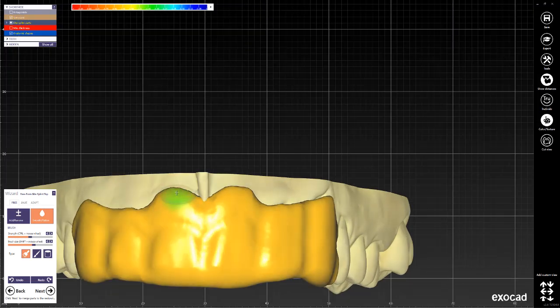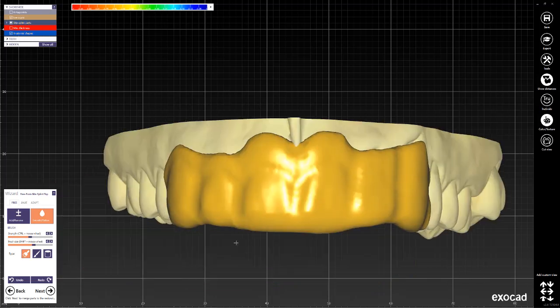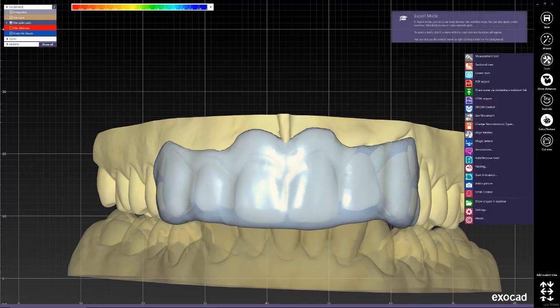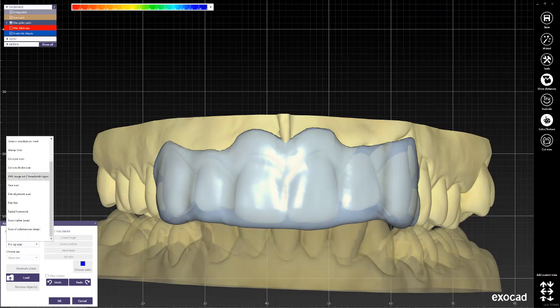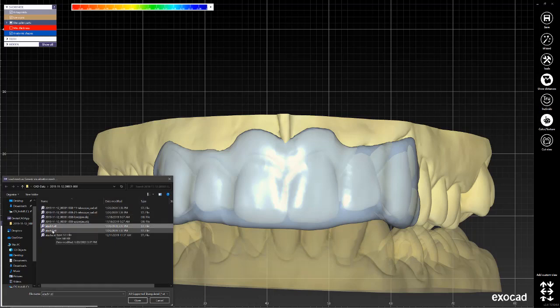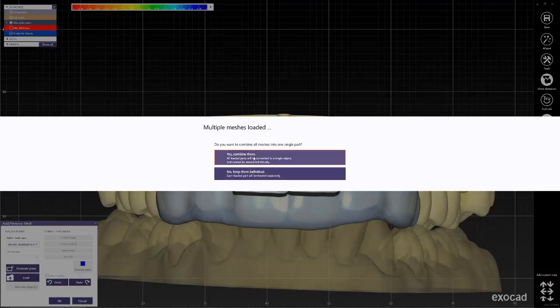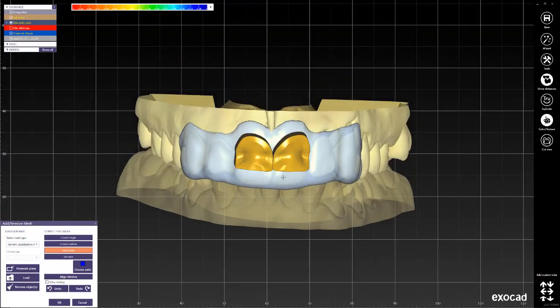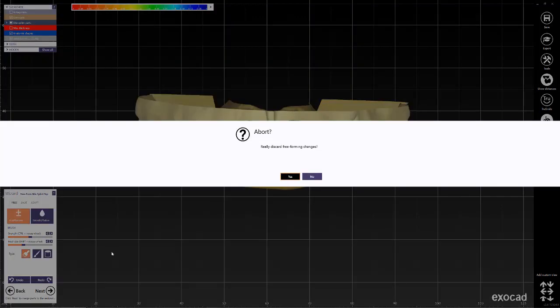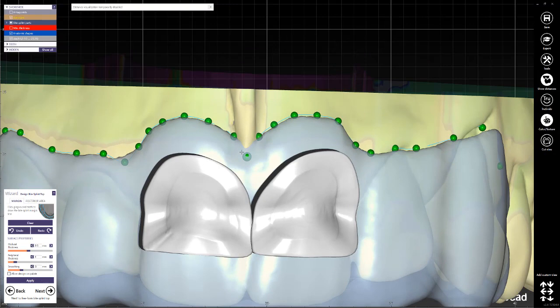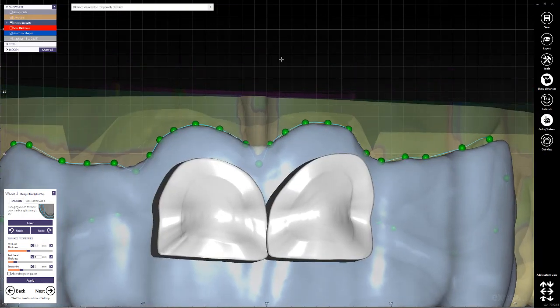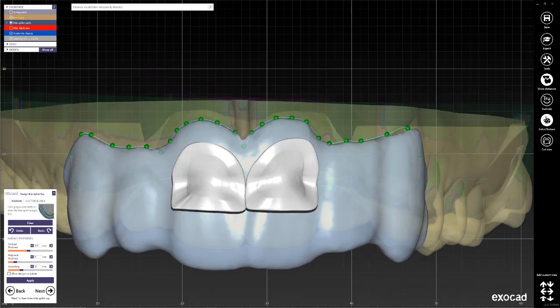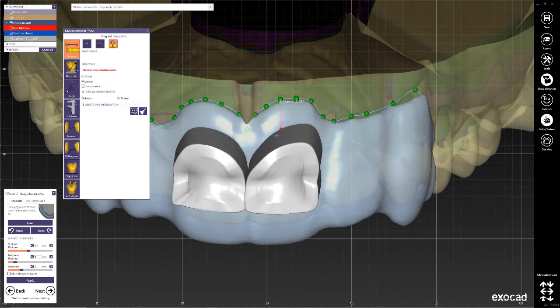We're really happy with our splint. In case you really want to measure where you're supposed to draw this, one option that you have is to go into expert mode. You can go into tools, add/remove mesh, select here from the drop down generic visualization mesh load, and then select your two attachments. Click open and they will be perfectly aligned. You can combine them or not, it doesn't really matter. With that information in place, you could actually go back to the point where you're drawing the line and then utilize either the grid in the background to determine more or less how much distance there ought to be, or you can bring in for example a measurement tool and then just measure from there to there and see how much distance there is. So approximately the three millimeters that I was told is required.